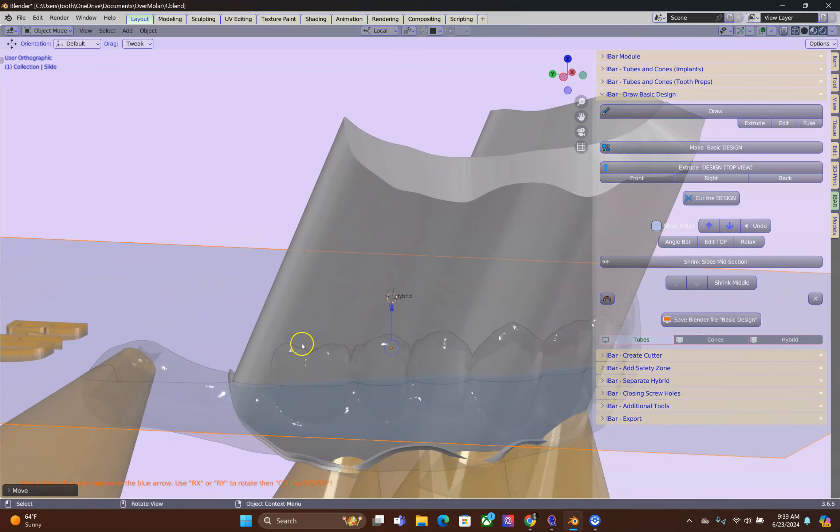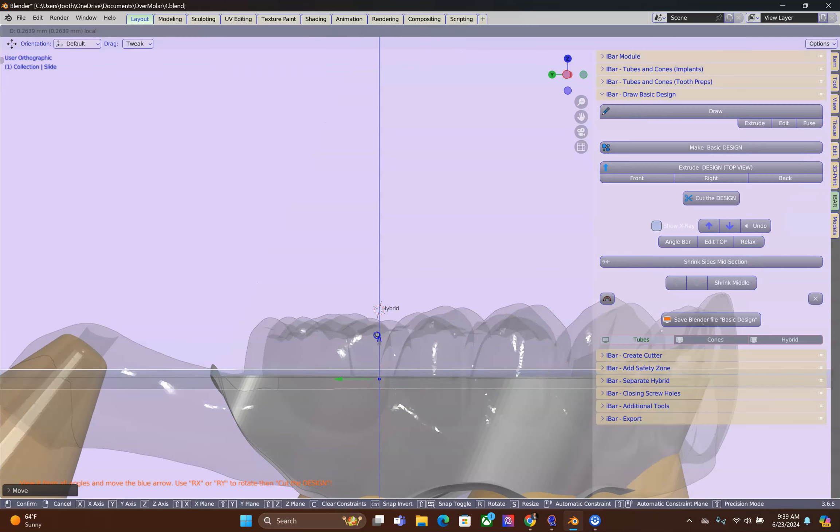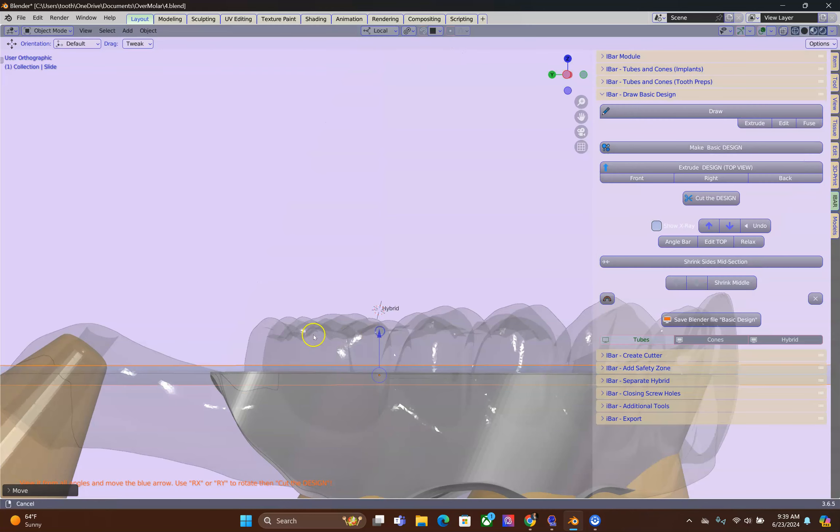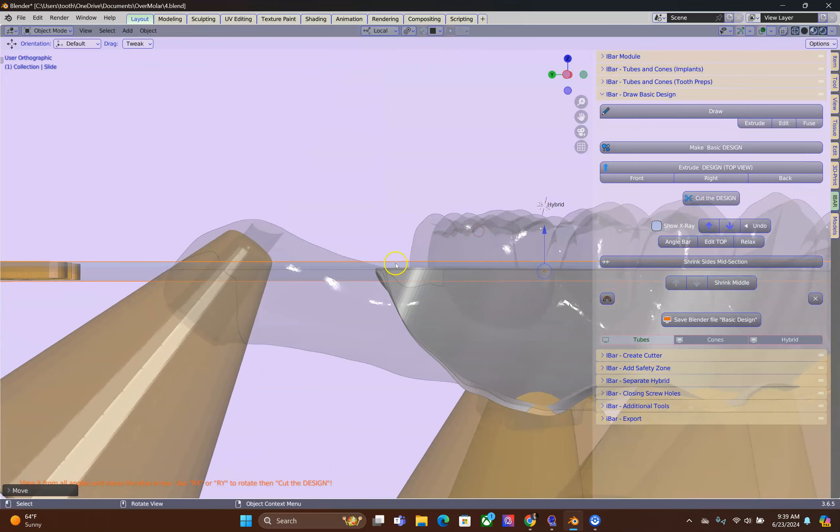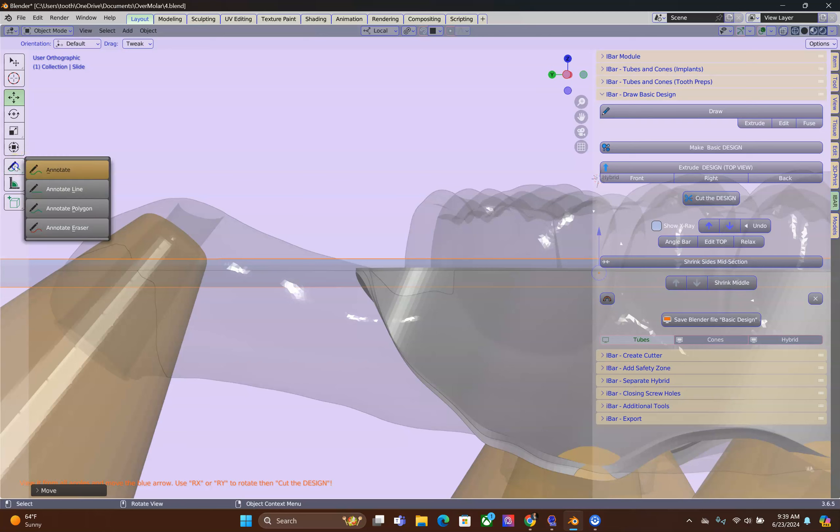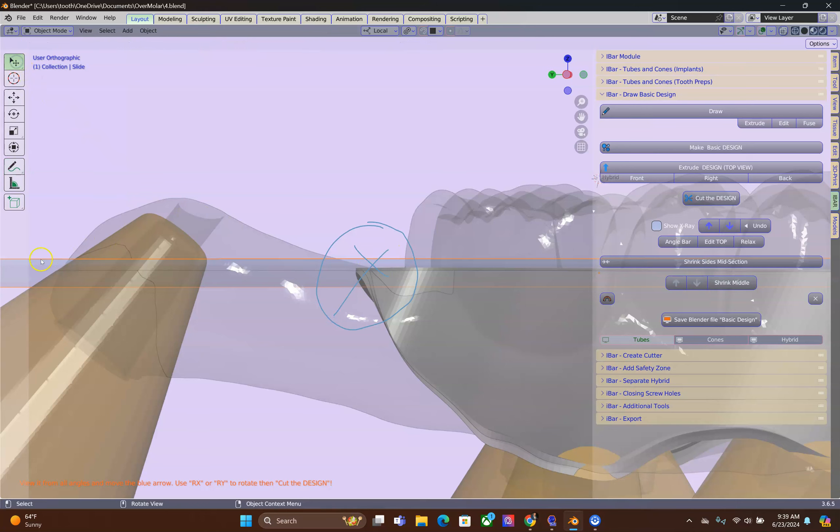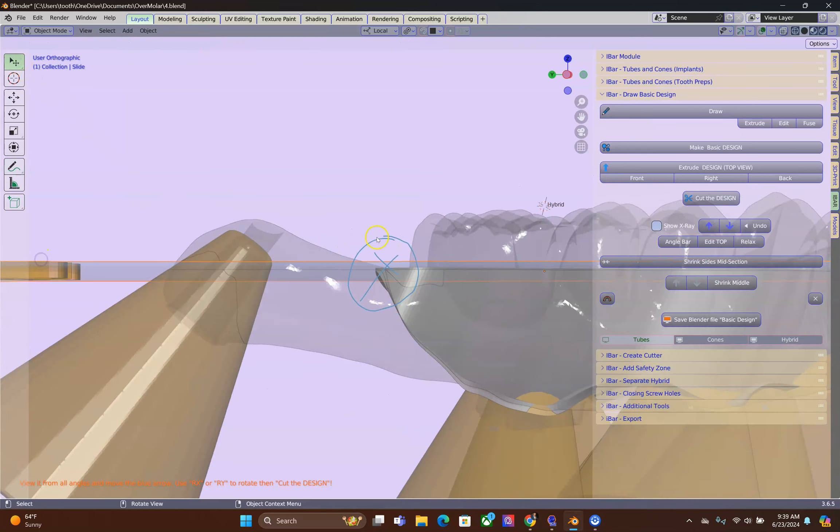And here is something to take note. This is very, very important. Especially if you go over the molar. Here, even though it's cut, this is incorrect. You have damaged your outside of your cutting tool. So this is absolutely not correct.